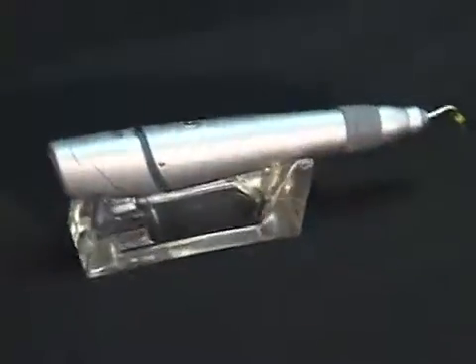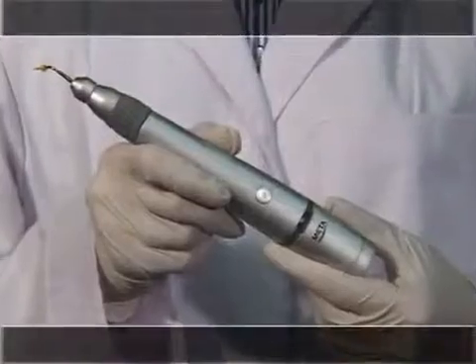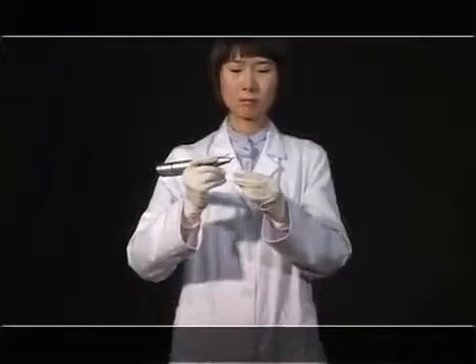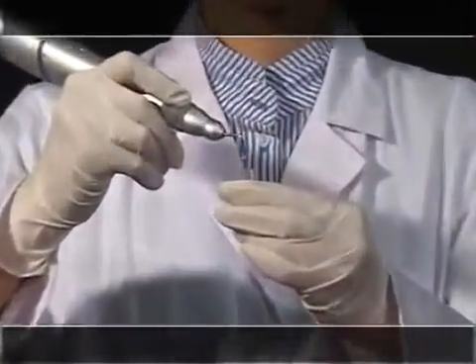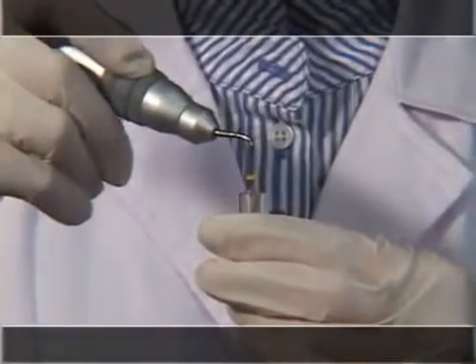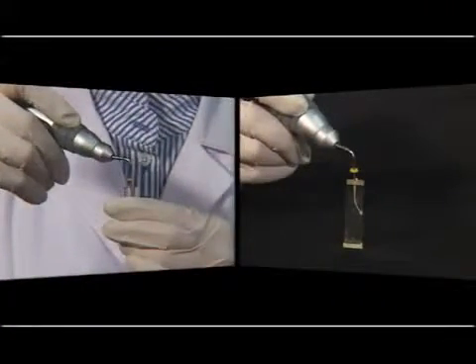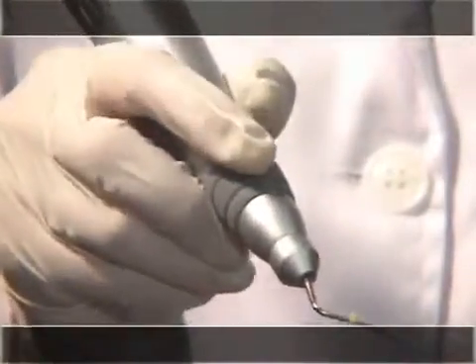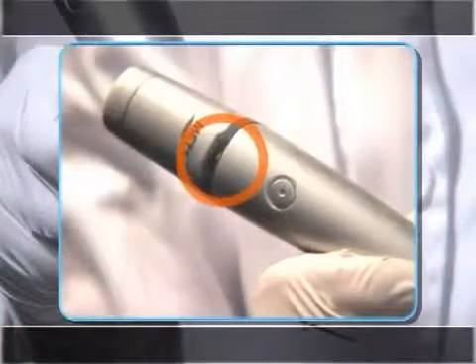We will provide notes about the Master Pen for effective use of this product. The pen tip is designed to heat the apical point and to fill the root canal elaborately with Gutta-Percha, melted by the heat at the apical point, which is inserted into the root canal inside the tube. The operation switch can work in every direction, and its lamp flickers with sound during operation.